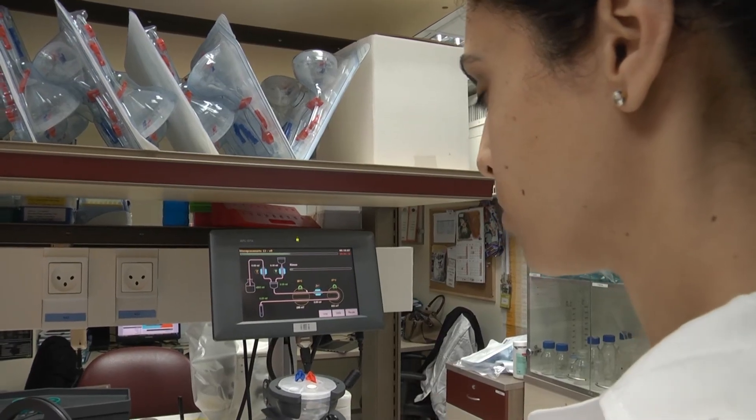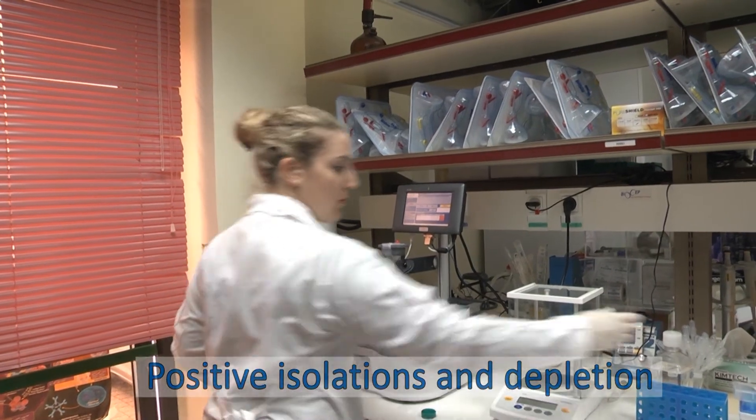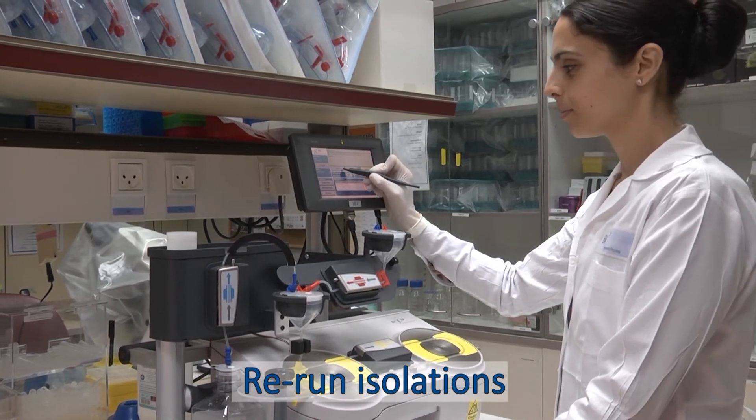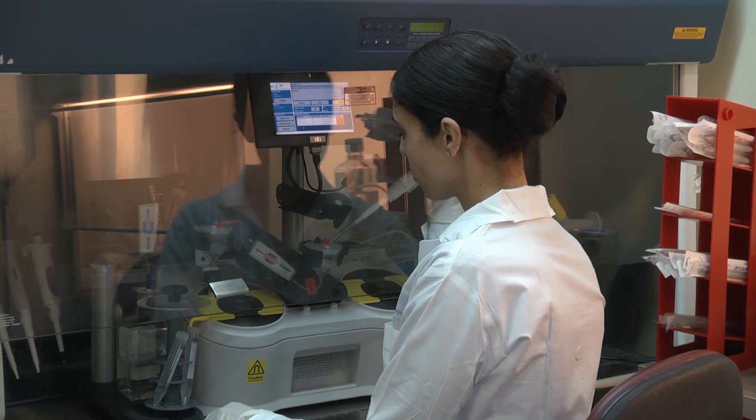The SAPIR supports both positive isolation and depletion. The special design allows users to re-run their isolations in a circular manner for even higher recovery and purity rates, without compromising sterility or cell viability.